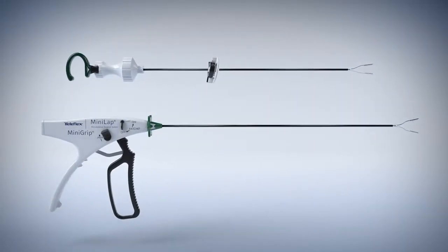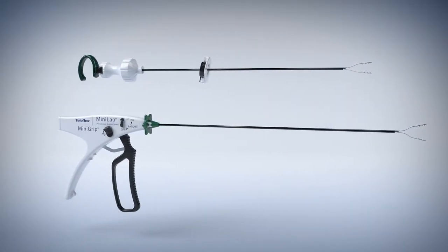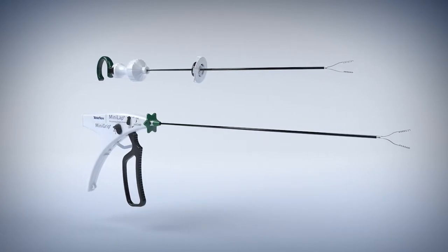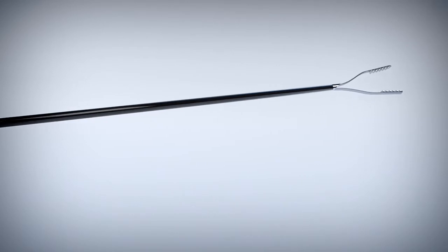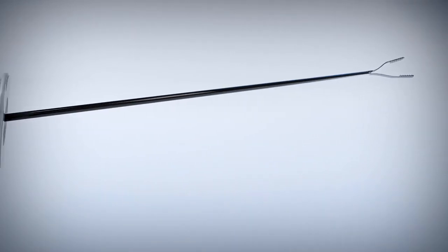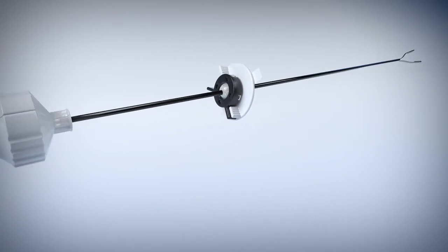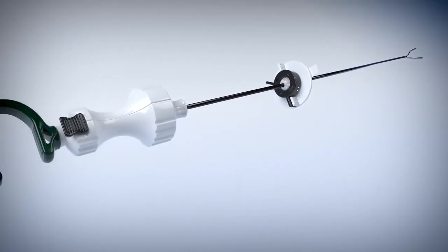Introducing the Minilap Percutaneous Surgical System and the Minilap Percutaneous Surgical System with Mini Grip Handle. The Minilap system allows surgeons to add a device that could help with dedicated traction and counter traction or cutting and coagulation without adding a trocar.